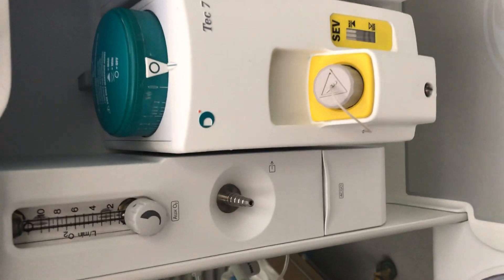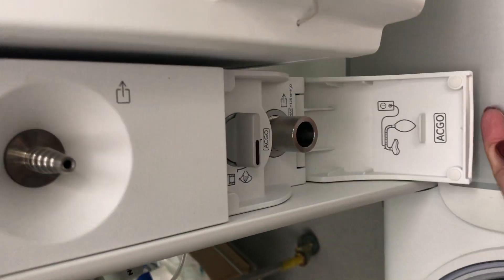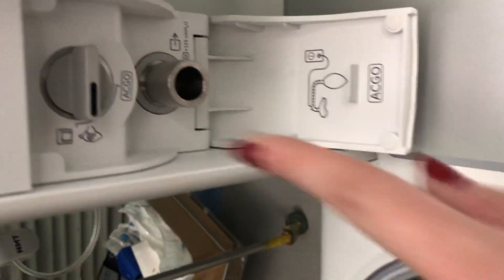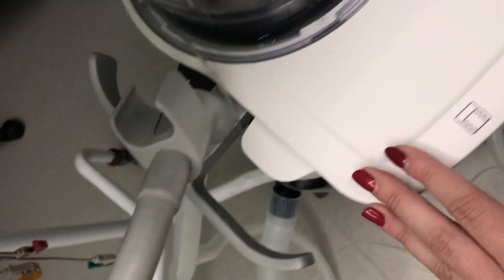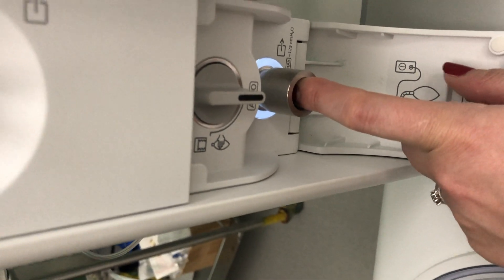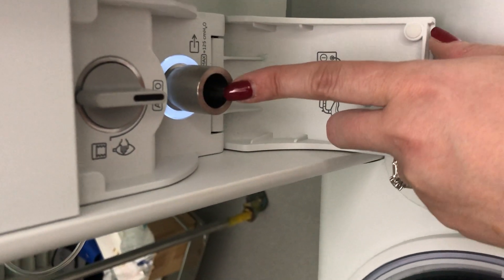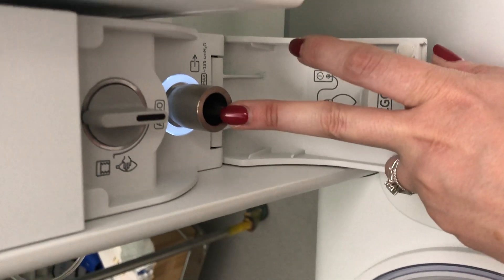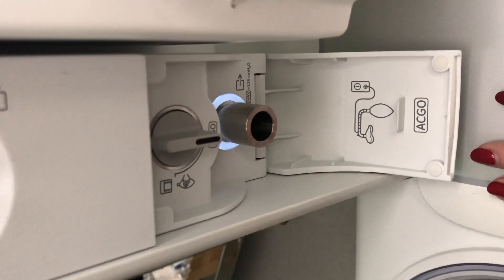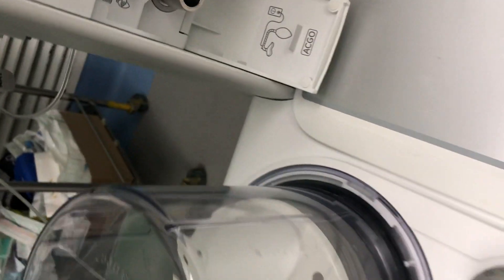There is also a connection marked ACGO — Auxiliary Common Gas Outlet. By flipping a switch, this becomes your common gas outlet and you attach your breathing circuit here. We use it exclusively for children, attaching a Jackson-Rees T-piece circuit because it's a smaller breathing circuit with less dead space and resistance. This setting is specifically for the induction of children weighing less than 20 kilograms. Switching back returns to the normal mode of the anesthetic machine.